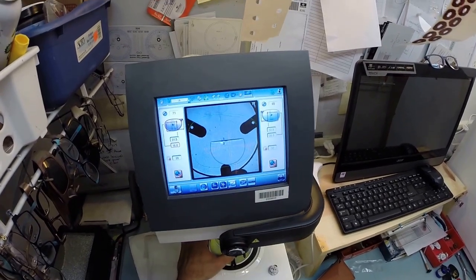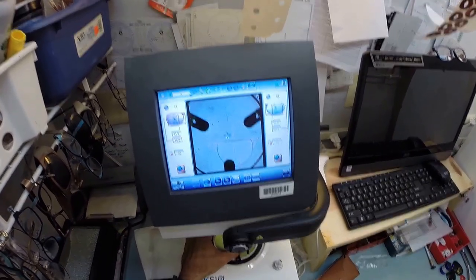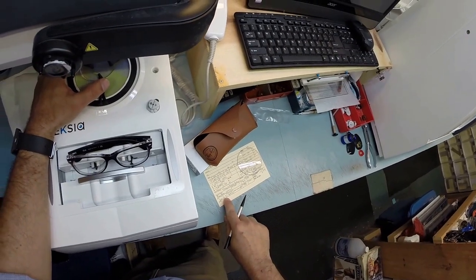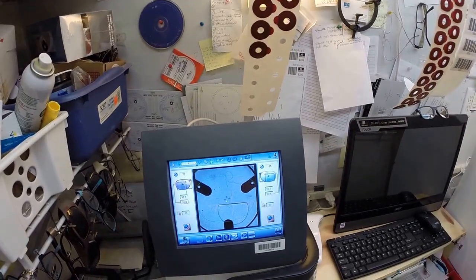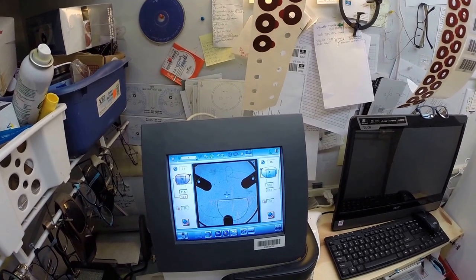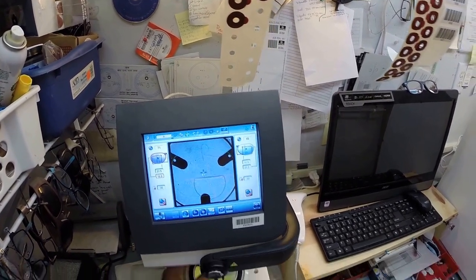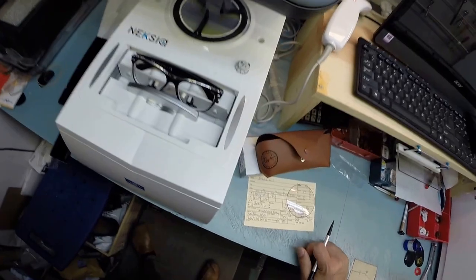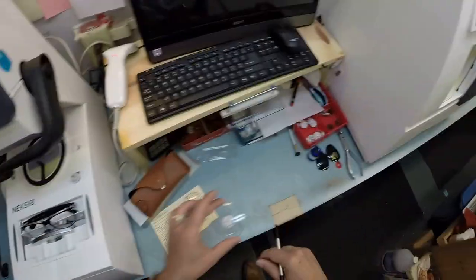Now this, as you can see, is the bifocal. I'm going to line it up on this grid. We're at 31.5, 16, 31.5, 16. We're good there. I'm going to get everything lined up just perfectly. And hit the button, and now the block is going to be applied to your right lens.